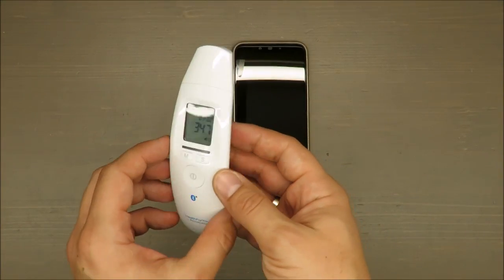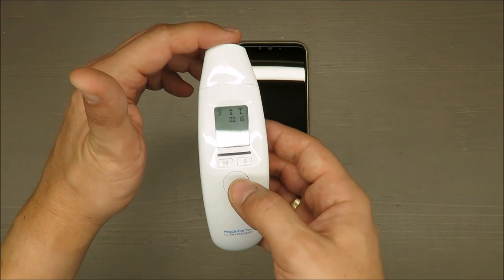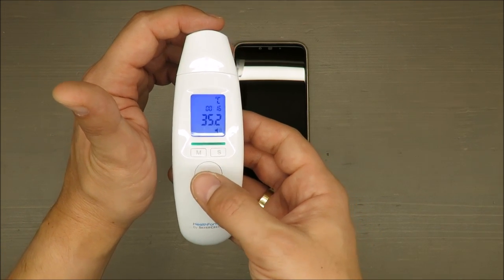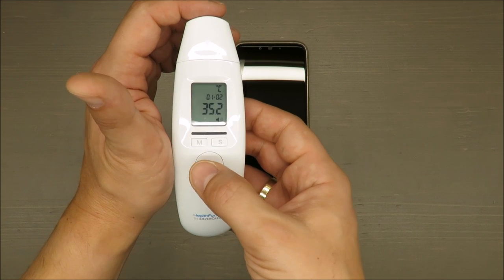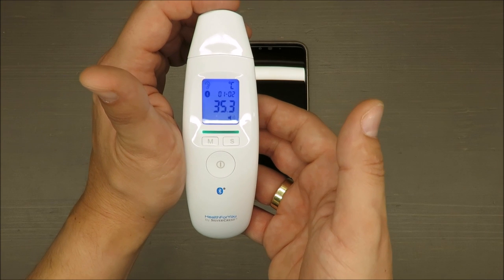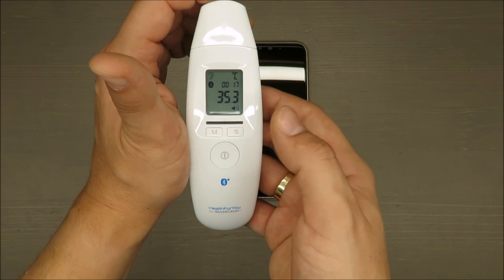For me a little bit out and not precise. 35.2 again. 35.3.